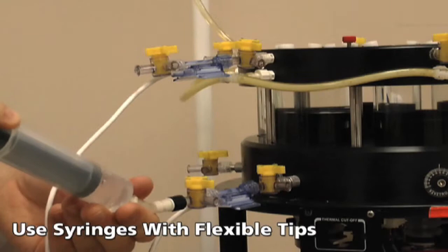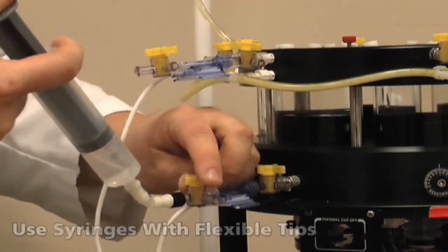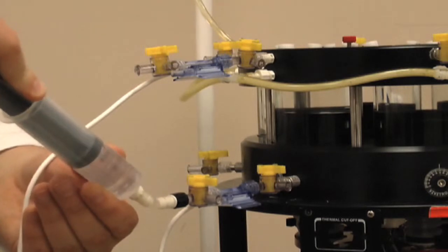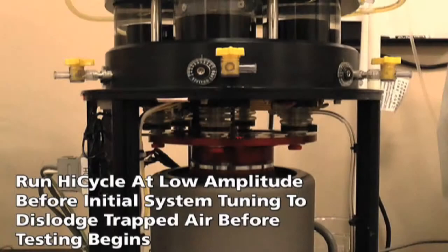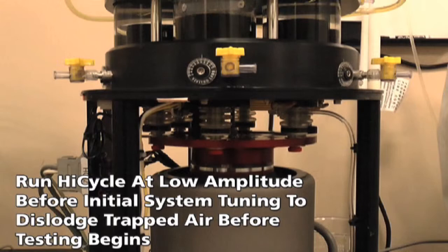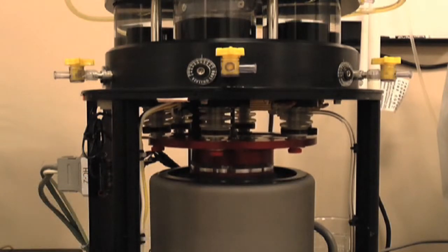Use syringes with flexible tips so you can encourage extracted air bubbles to the back of the syringe instead of accidentally introducing air bubbles. When first filling the HiCycle chambers with test fluid and fixing devices to the pistons, air can get trapped in small pockets.